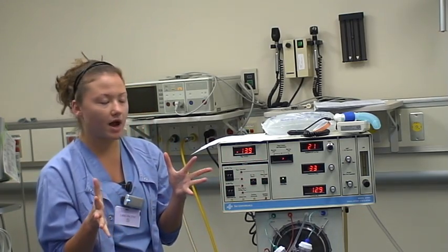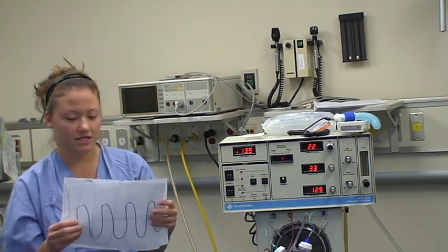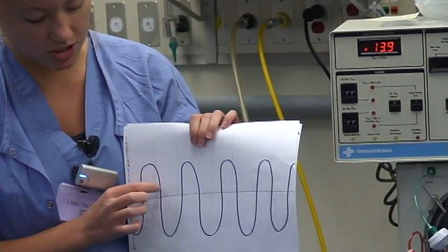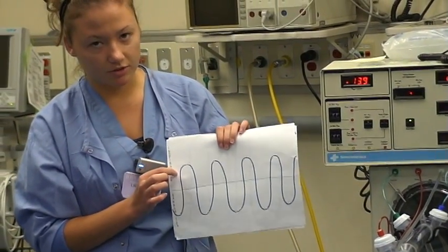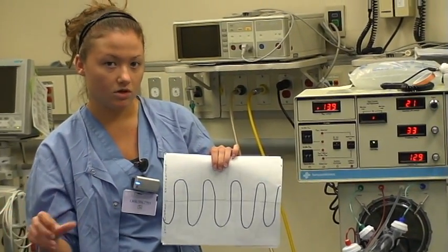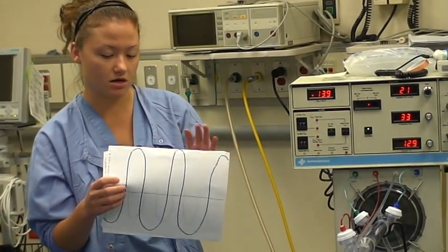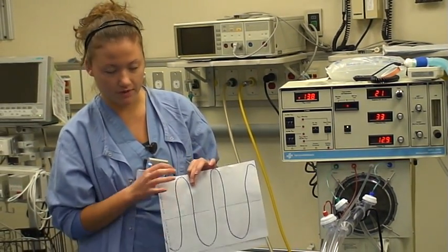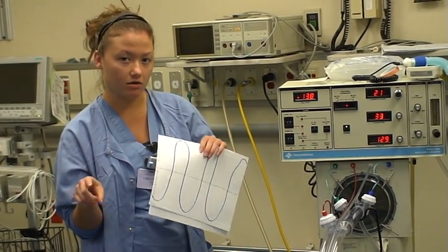An easy way to think about amplitude is in wave form. The wave is a diagram where the amplitude is the height of the wave — the height of inspiration and the height of exhalation. The smaller the amplitude, the smaller the breath, which means less CO2 is removed and your pH becomes more acidotic. The larger the amplitude, the larger the waveform, which removes more CO2 and makes your pH more alkalotic.